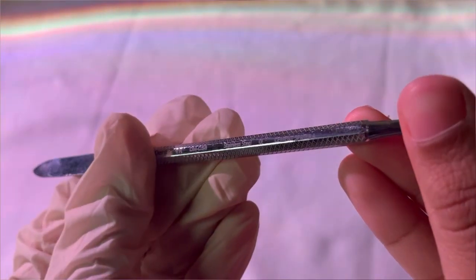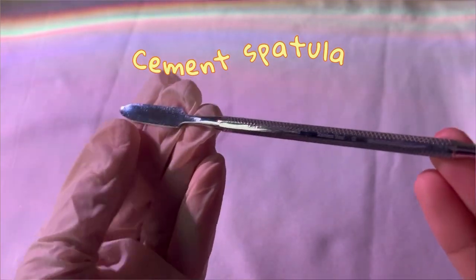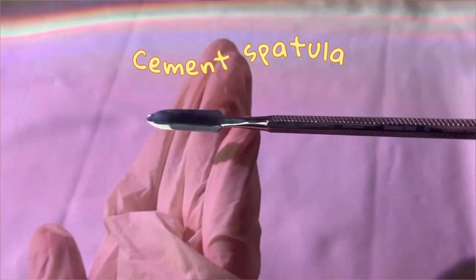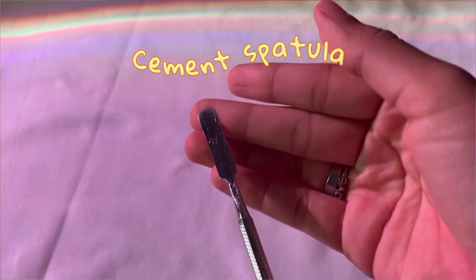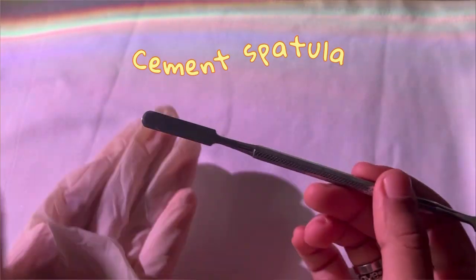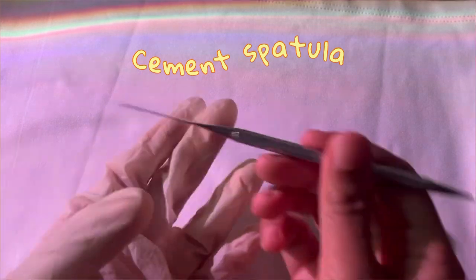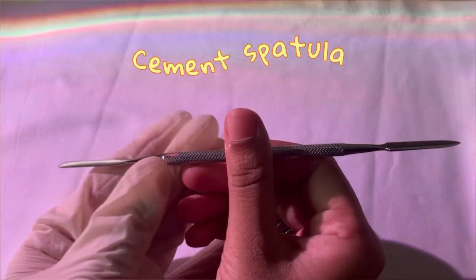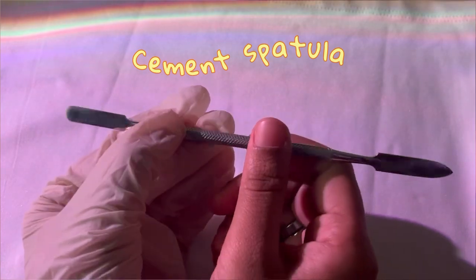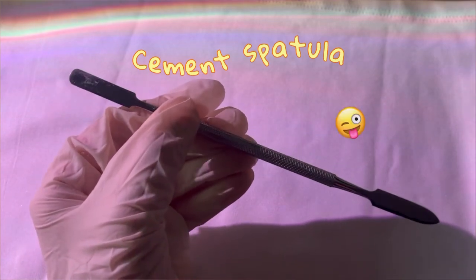The third instrument is a cement spatula — a cement mixing spatula which has two ends: one curved and one flat or cylindrical. You will use this to mix different types of cements, whether for endodontics or prosthodontics. This is a conservative kit so technically it's for endodontics, but we use it for prosthodontics too — until your teacher doesn't know, enjoy!